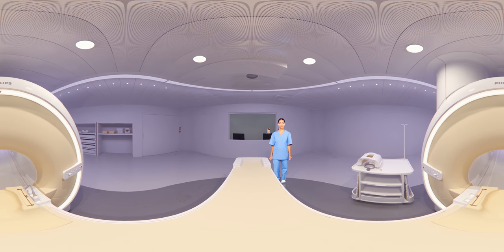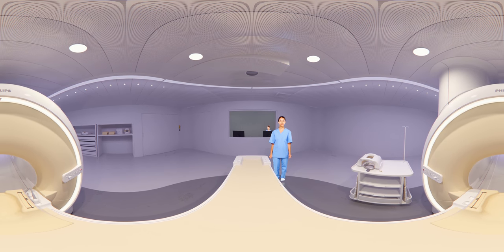The examination is complete. We hope you now have a good feeling about your MRI scan and know what to expect. You won't get the results right away — the images will be evaluated by a radiologist first. Later, your doctor will talk to you and explain the outcome.